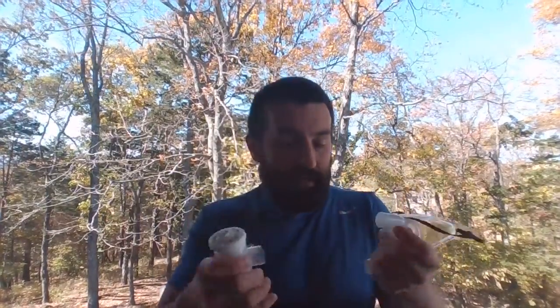Again, I'm sitting upright, and yeah, it'd work, okay? But if most of our patients are sitting like this, there's just no real way you can get that thing to sit flat and stay connected. So you'll see people that are running with the band elbow, and that's fine.